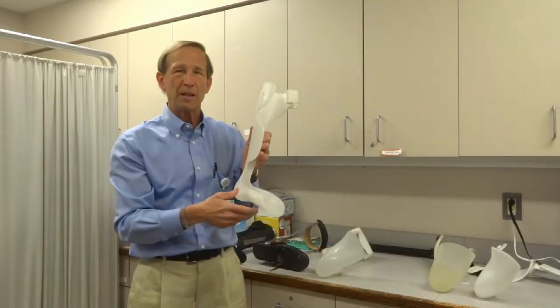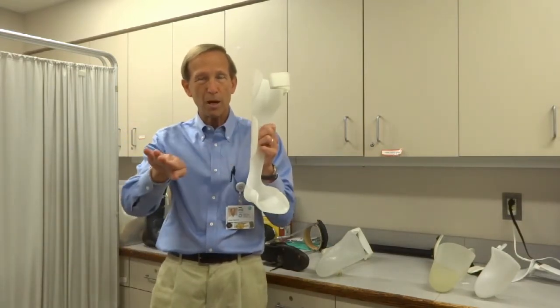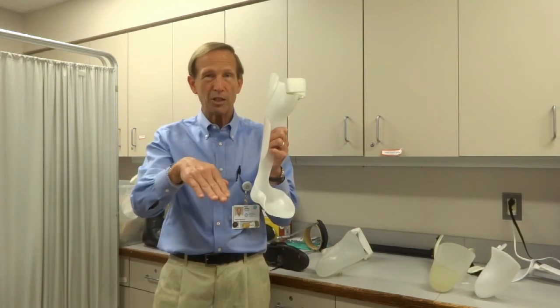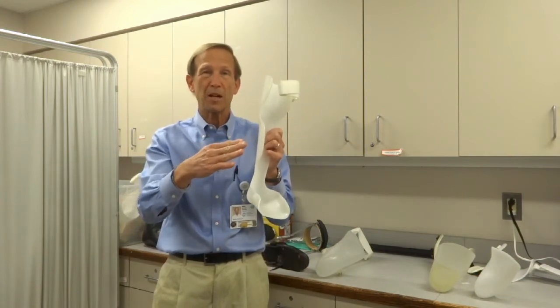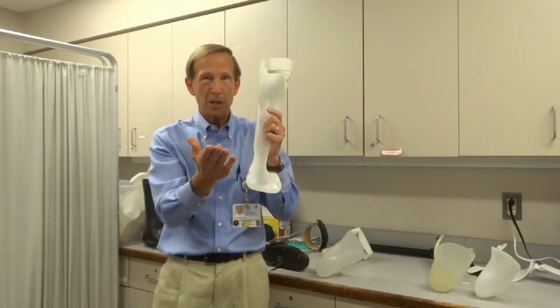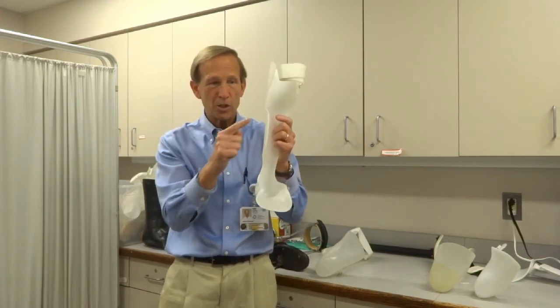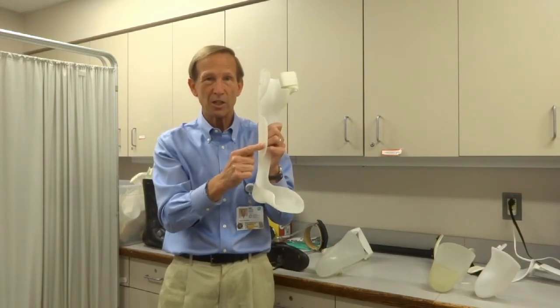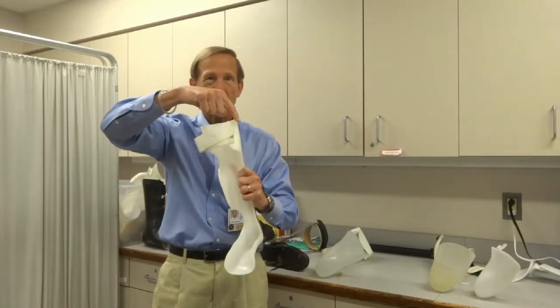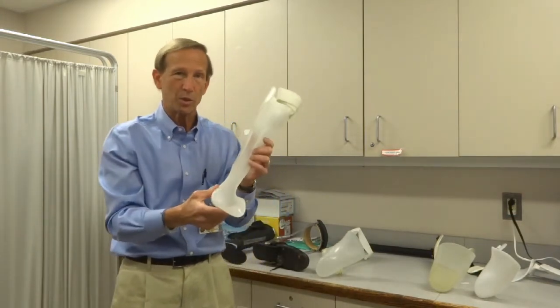Sometimes we have to worry not just about the foot dropping down — what we call foot drop — but also about the foot turning inward or outward, called inversion or eversion. When a person has a stroke, their foot may typically push down but also turn in, so we have to stop that foot from dropping and inverting. The foot plate holds the foot up and prevents excessive turning, but the ankle may want to roll outward. So we add a piece called a lateral flange, creating three points of control: the medial foot plate, the flange, and the calf, stopping the foot from turning in and the ankle from rolling out.